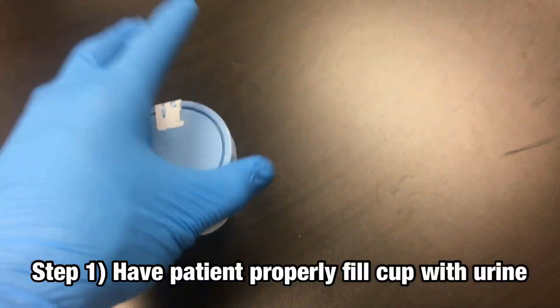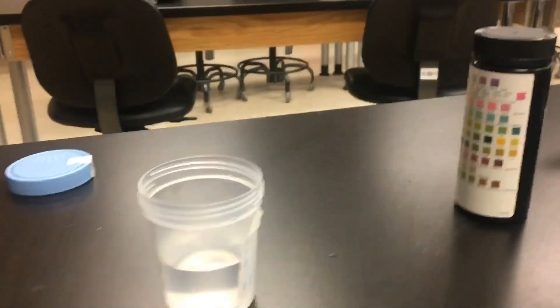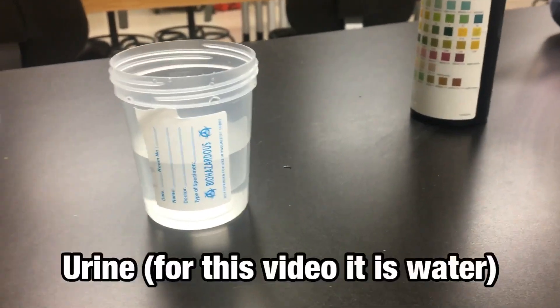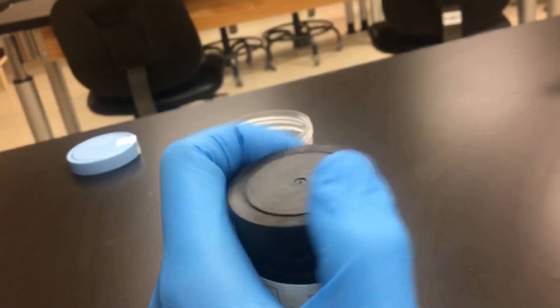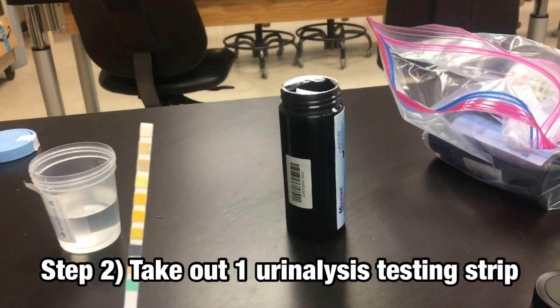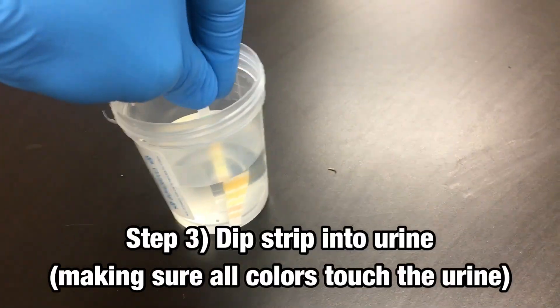First things first, you want to go and fill up your cup. We've got the urine — in this case it's just filled with some water. What you would want to do is make sure you're wearing gloves to perform this test. You're going to take out one testing strip from the kit and dip it into the urine.